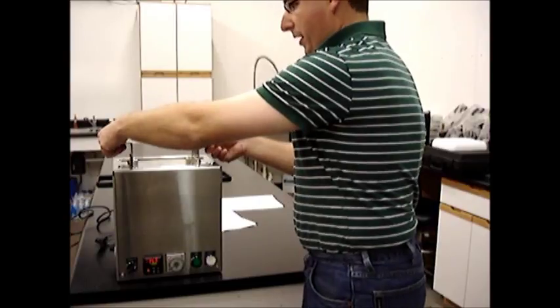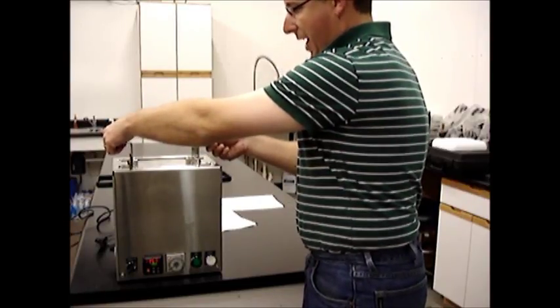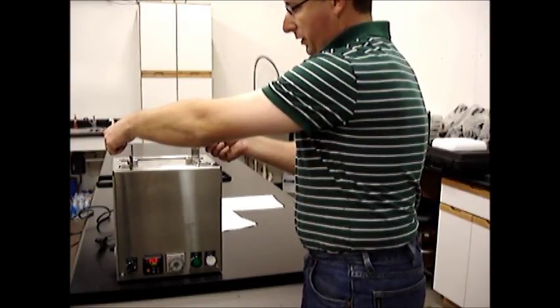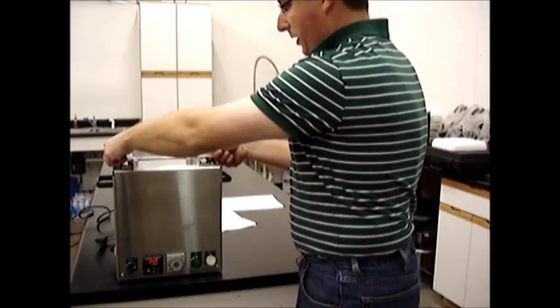So at this point in time what we'll do is we'll go ahead and reach up to these tabs right here and release them and we'll go ahead and plunge our straws directly into the liquid nitrogen.